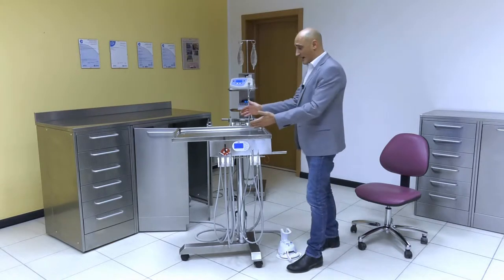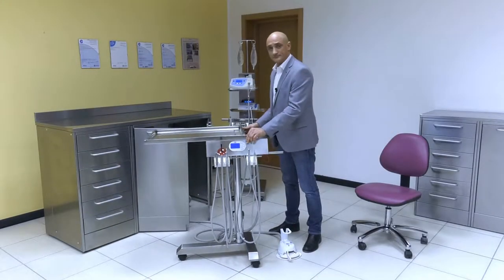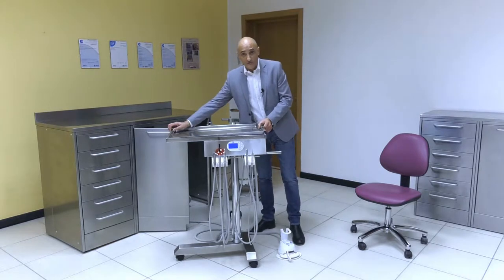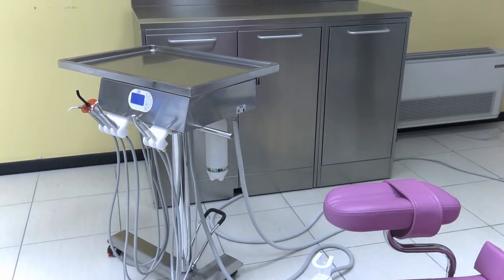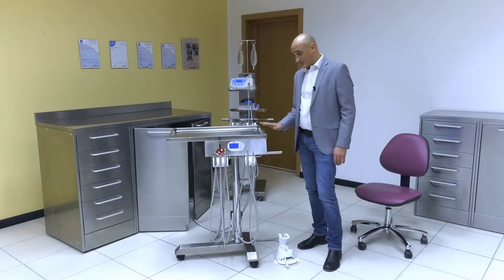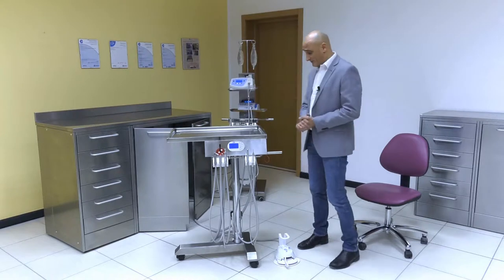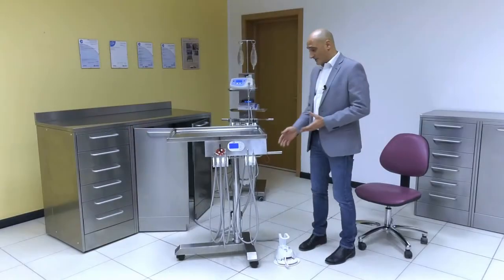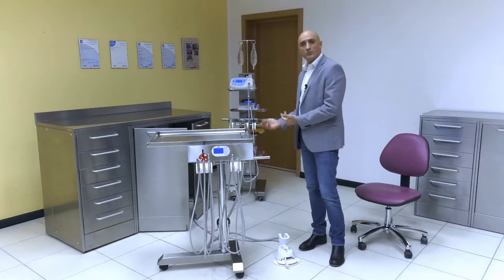The system is fitted with a Mayo table, which was designed specifically to be moved and, if need be, removed. Maykart is connected using a tube linked to a control unit fitted into the closet. The reason why we moved this tube up is that by moving the cart around, being in a higher position, the tube does not get in the way and does not make your job harder.